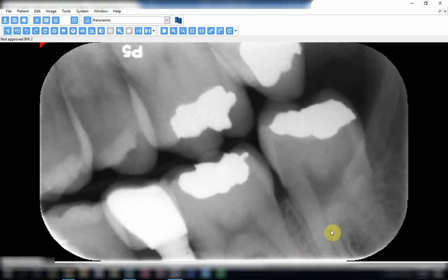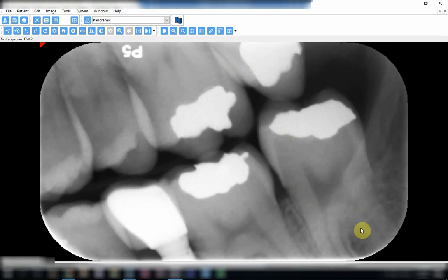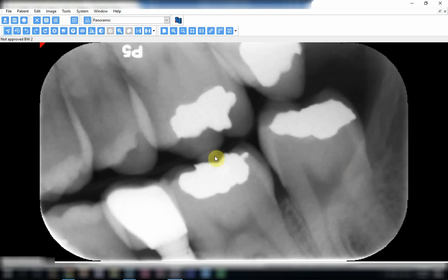This next radiograph has a number of mistakes. The first one is unequal coverage of the upper and lower teeth — the film covers more of the lower teeth. You can see the difference in the amount of the upper versus lower molars displayed. This is incorrect film positioning; the film failed to follow the same curvature of the arch. The second mistake is incorrect horizontal angulation, evidenced by the overlapping of proximal surfaces.